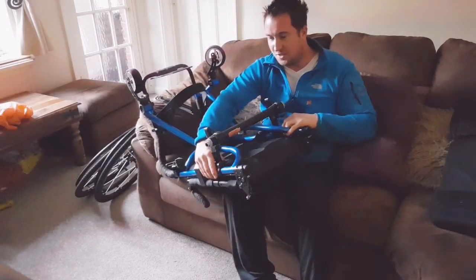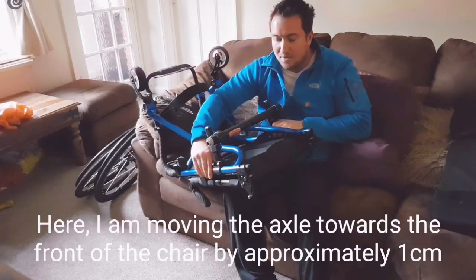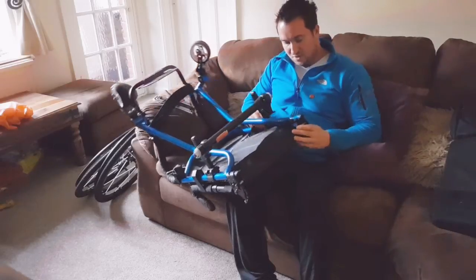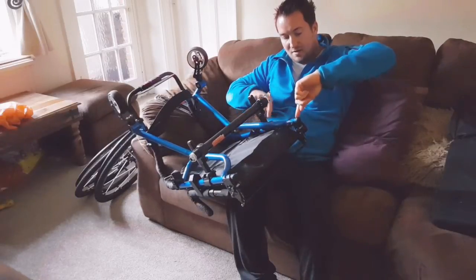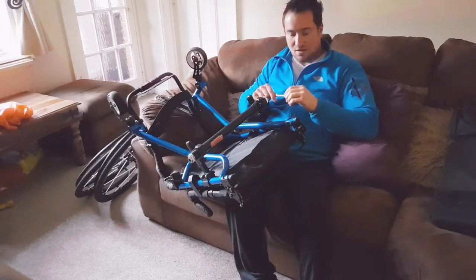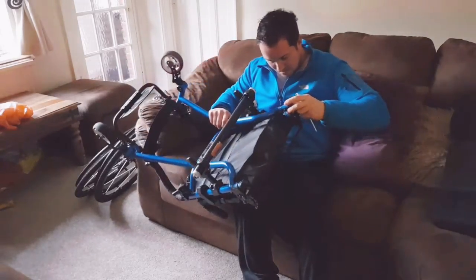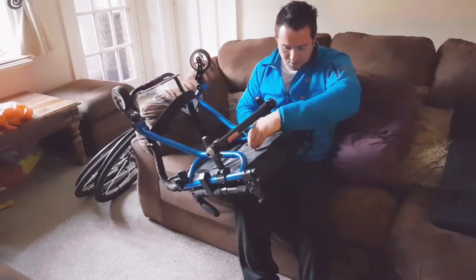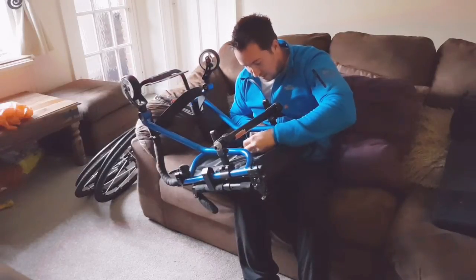Okay, so now I've got this adjusted and loosened, I can slide the axle up and down. I've got a little tiny mark from before so I can see where I was, and I can go about a centimetre forward. Then I'm going to tighten up and make sure that the distance from the end of the blue frame to the axle bracket is exactly the same on both sides. It's a bit of a crude technique, but I just measured last time using the allen key as a gauge, and I'll show you how I did that.